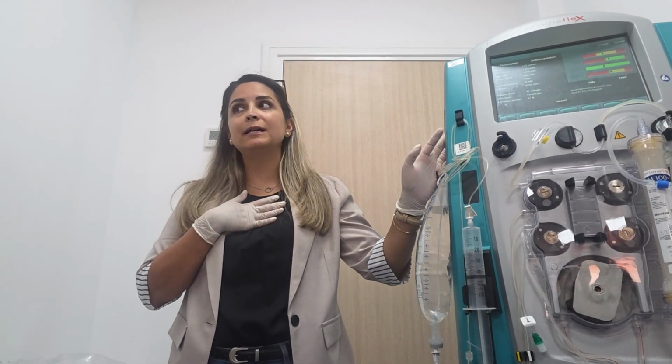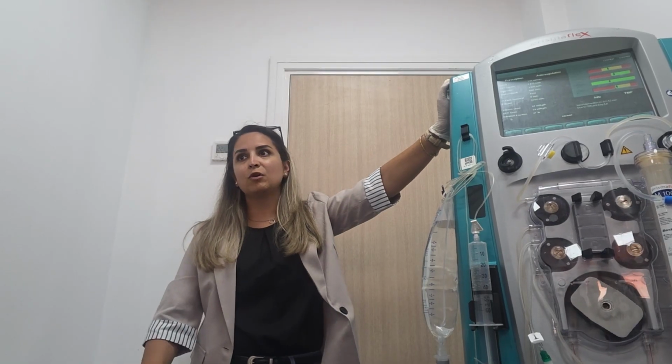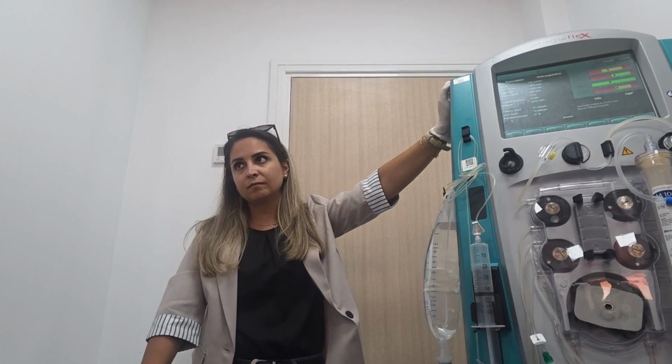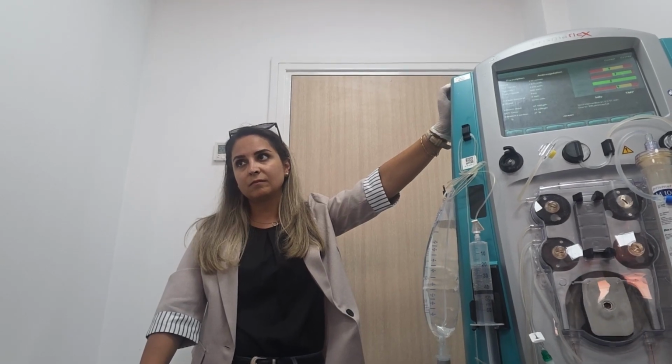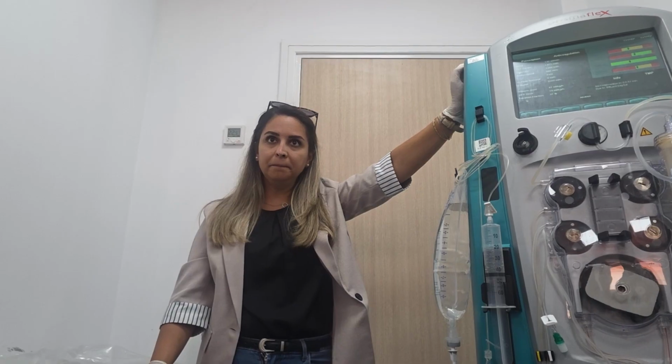I already told them, guys, you don't use your machine for citrate, because in your machine I already put only calcium chloride. I didn't put calcium gluconate. And their machine has two, calcium chloride and calcium gluconate. That will be for a different purpose. Because sometimes borrowing machines can confuse, if they're going to borrow, just inform them that they cannot use this one for citrate. For normal CRRT, they can use it, no problem. But for citrate, no.